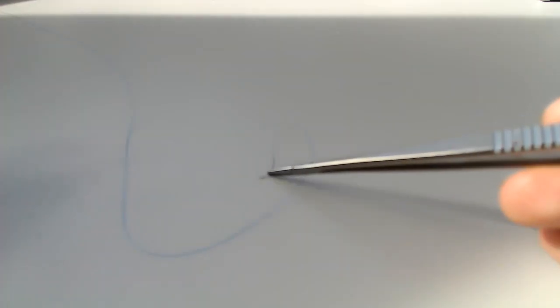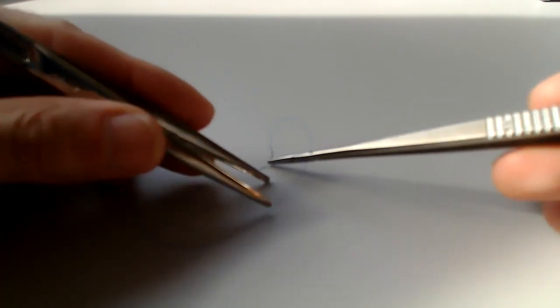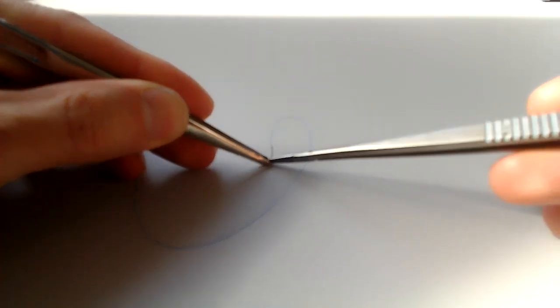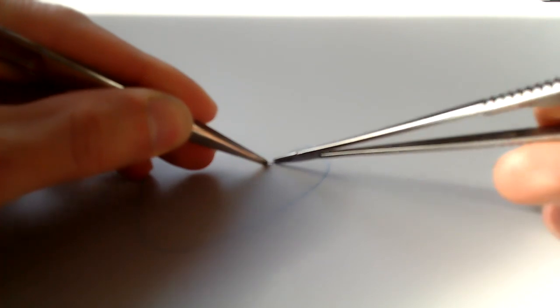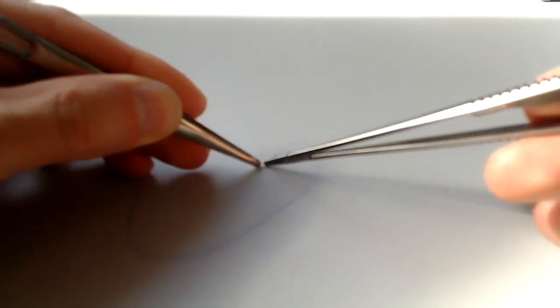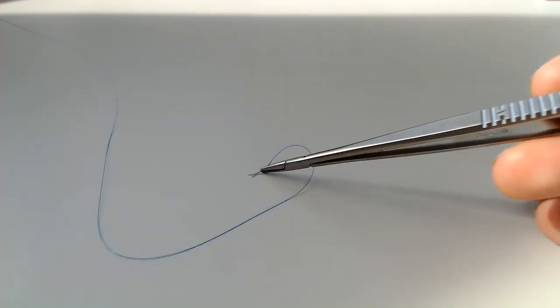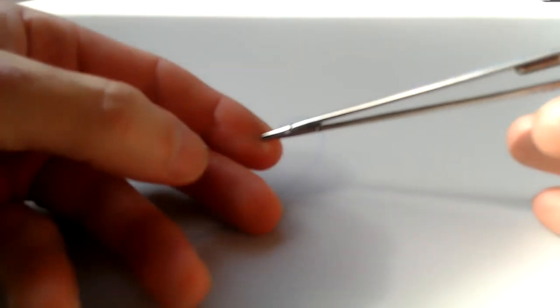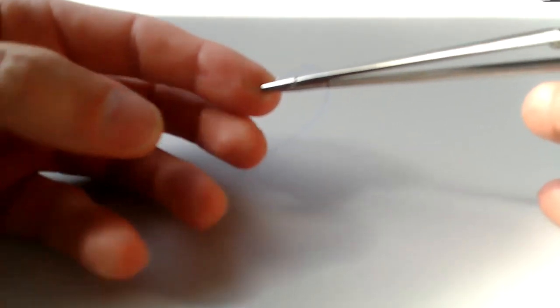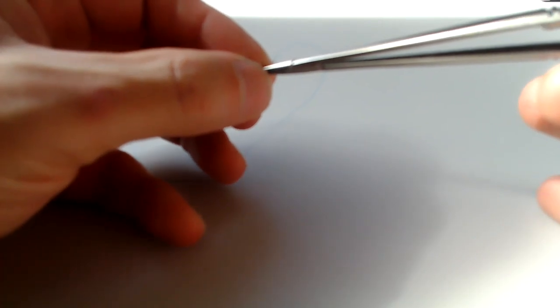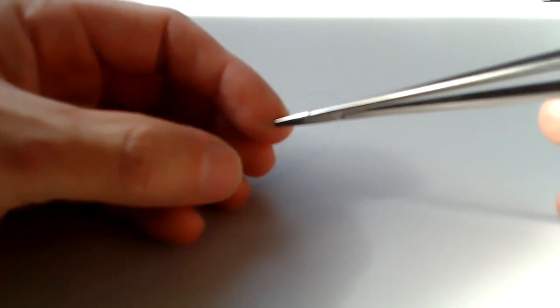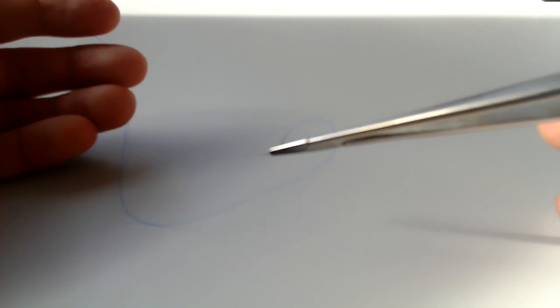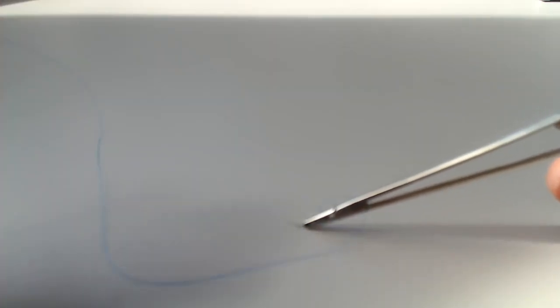It's better if you lay the needle down on a flat surface. Laying it down like this, grabbing the needle and then getting the angle that you want. Doing the same kind of thing on your finger, on your glove finger. You may just adjust it carefully like this, being careful to protect yourself, of course. Or laying it down on a flat surface like an Ioban draped surface.